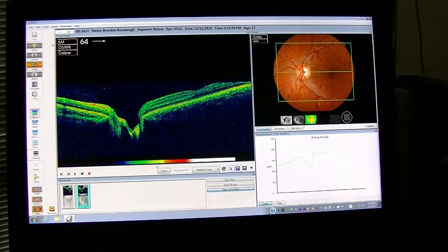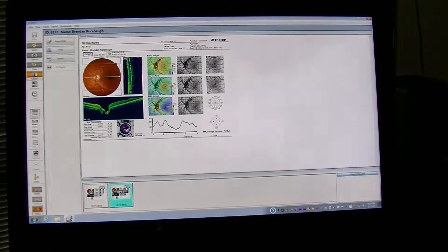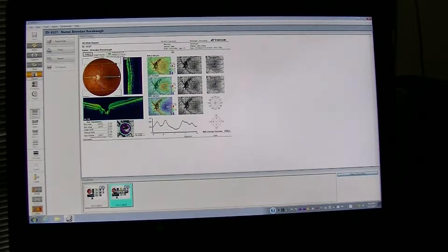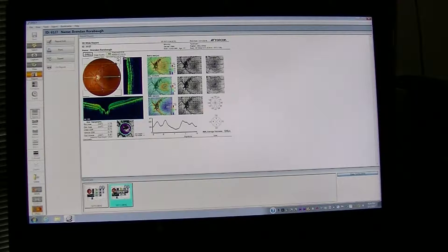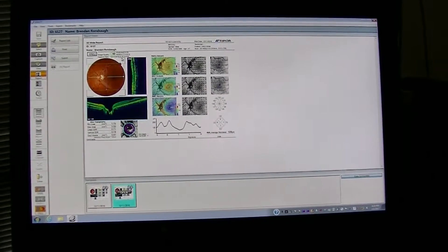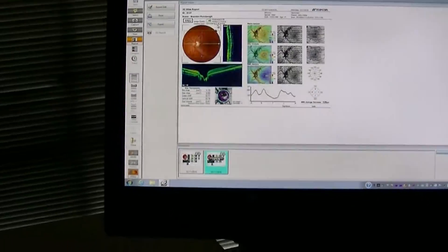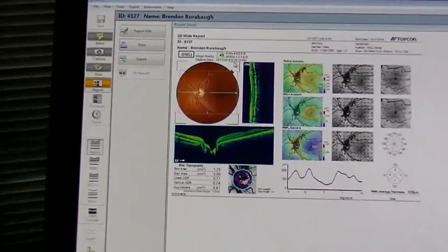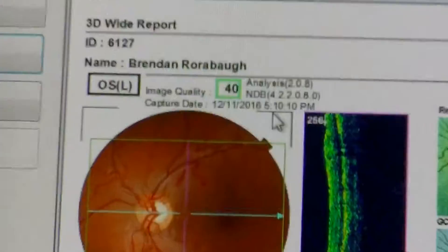You go right here and hit Report. And if you notice right here — now this is a different time, but if you notice right here, I'll zoom in on it. That is where the date and time is recorded on the report.